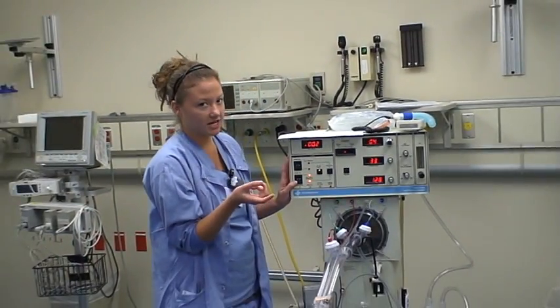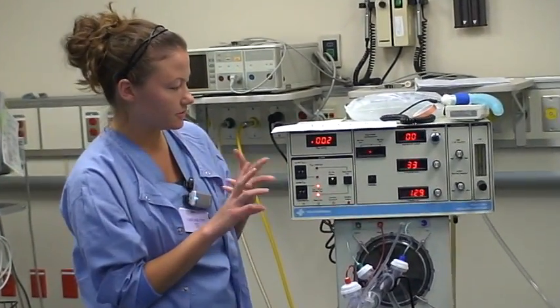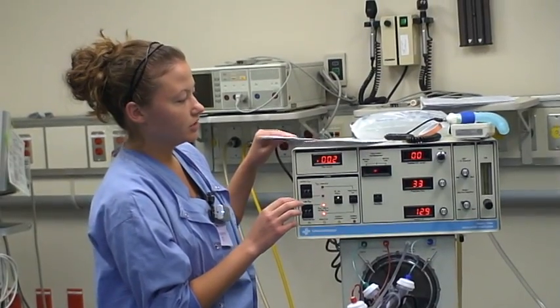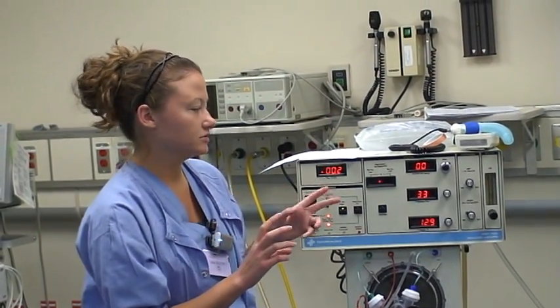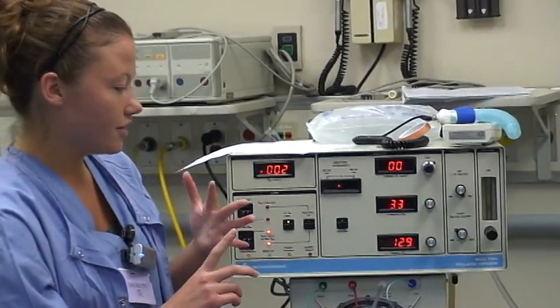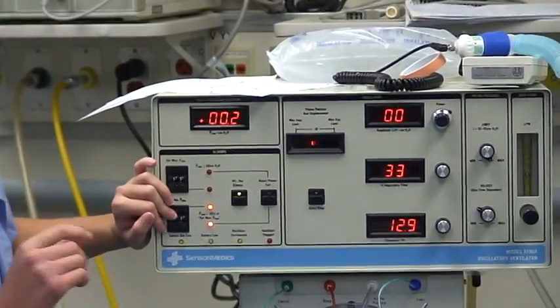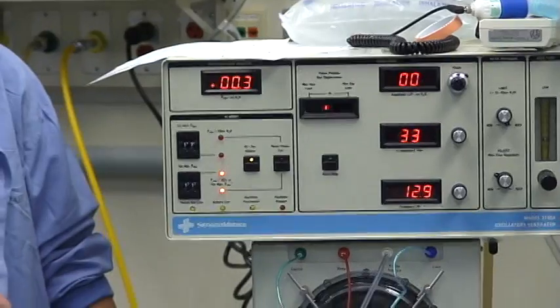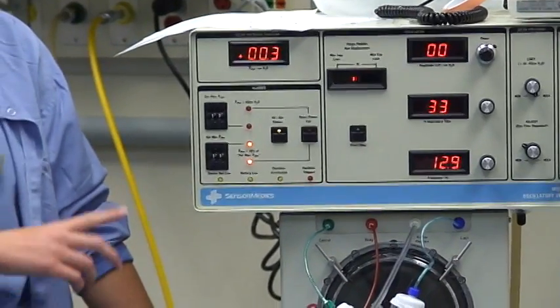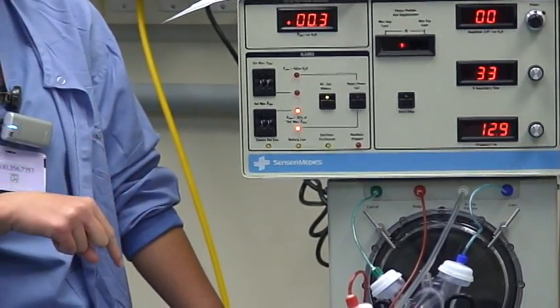Then you're going to pick your settings: your FiO2, your mean airway pressure, your piston placement, your amplitude, inspiratory time, frequency, and your alarms. Your FiO2 is set by a blender located on the side and it's analyzed by an oxygen analyzer.